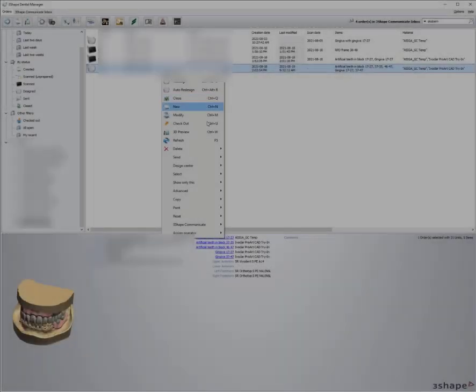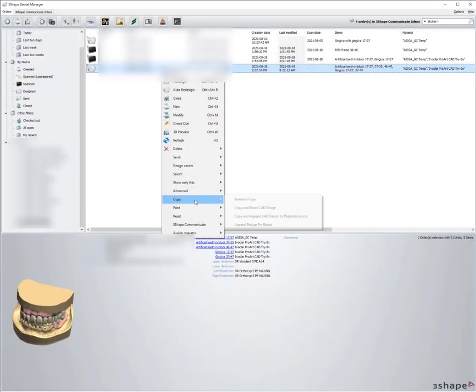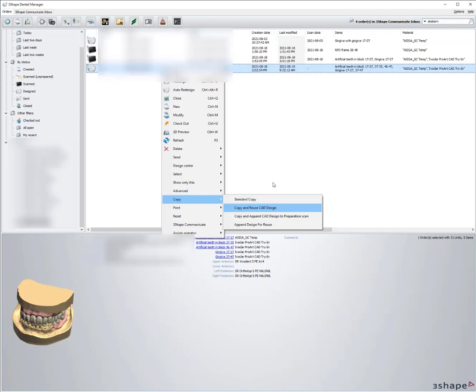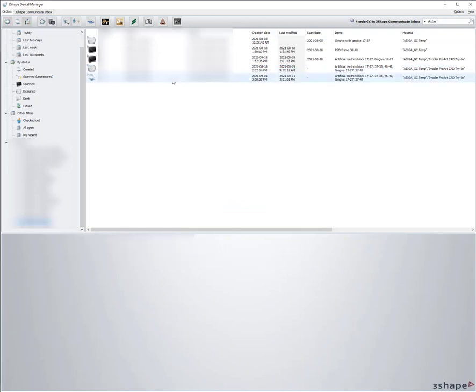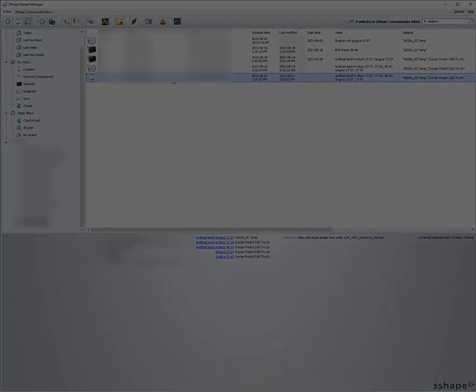So we're going to start from the beginning here. We're going to do a copy and reuse CAD from my previous design, and then we're going to open the files for the copy and reuse CAD and for the previous design.